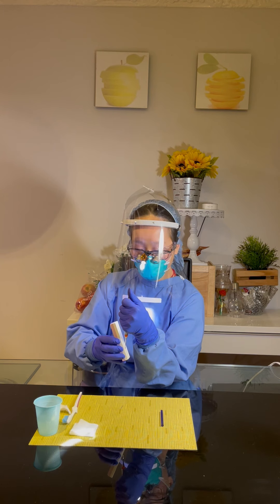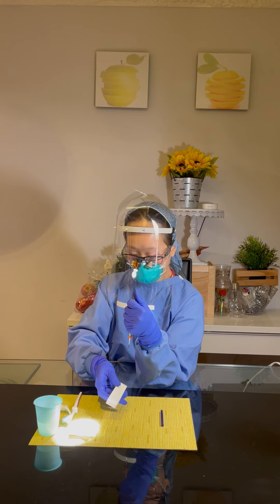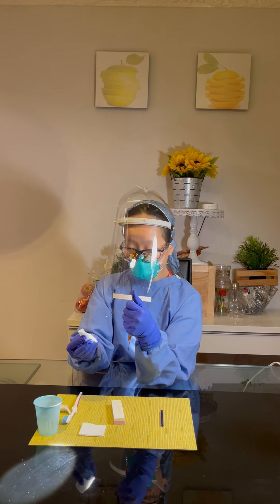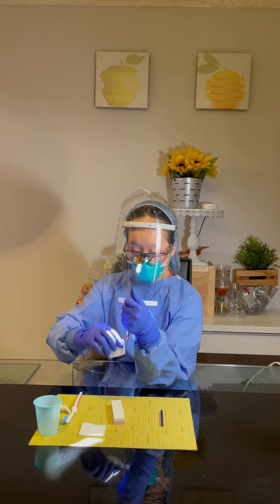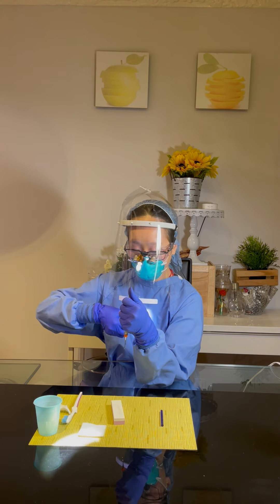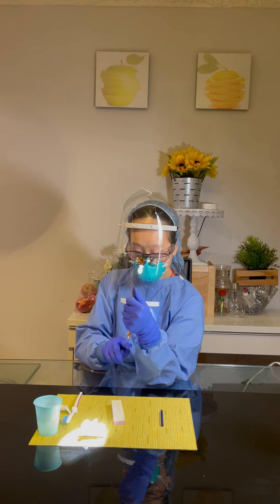Now I'm going to start. Move to the mid. Now move to the tip. I finish with the down stroke. Now I'm going to grab a gauze and carefully wipe the tip. I will start from the heel and wipe towards the tip.